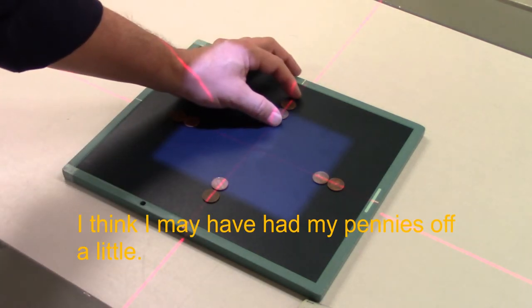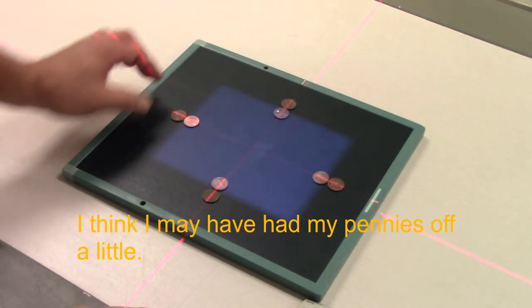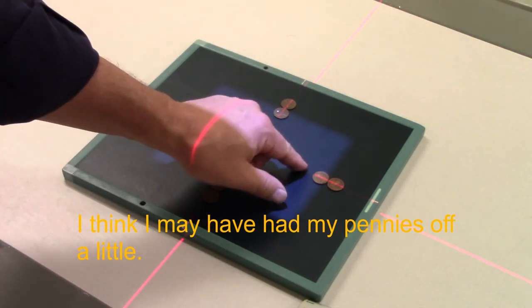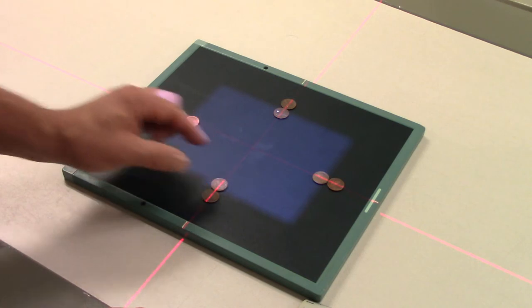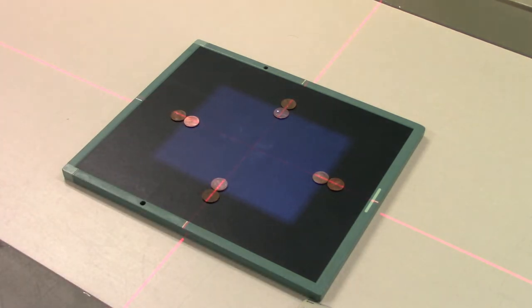As you may recall from just a few minutes ago, two percent of my SID here is going to be simply two centimeters or 20 millimeters, however you want to think of it. It looks like somebody has absconded with my last penny.